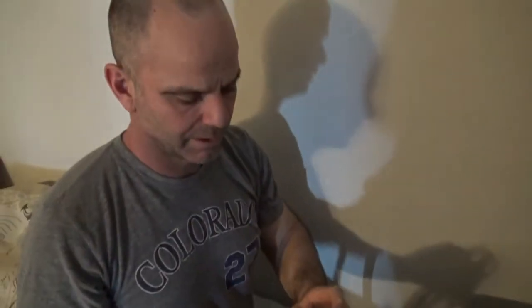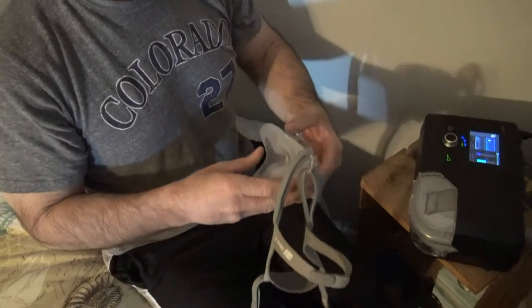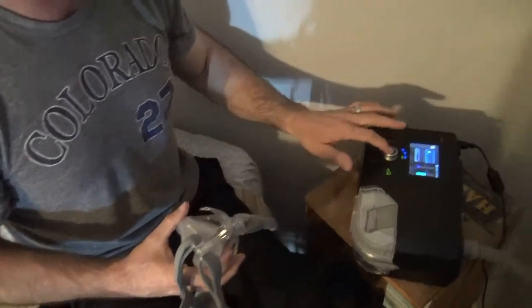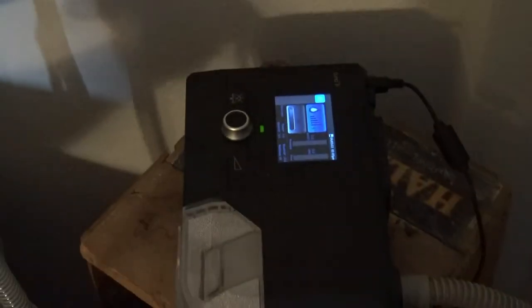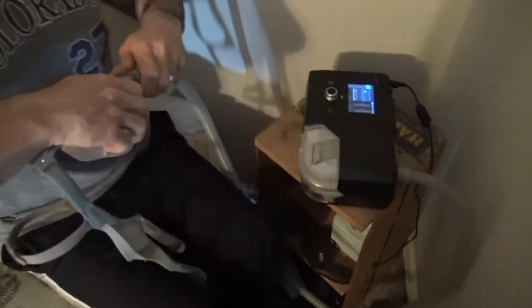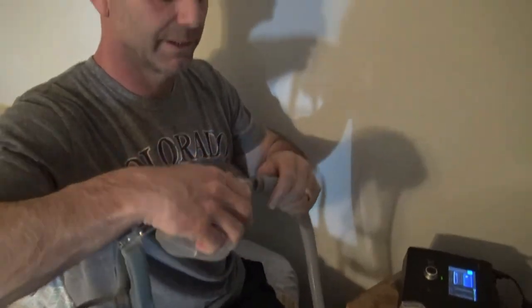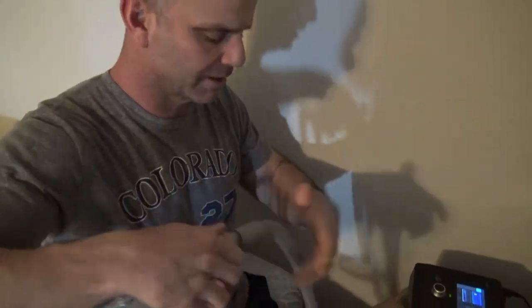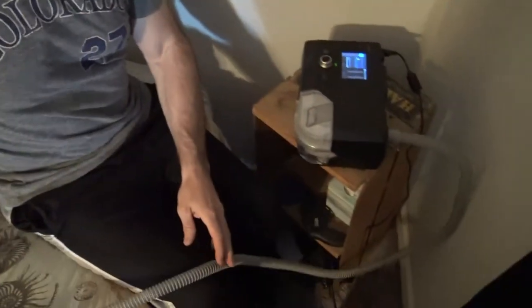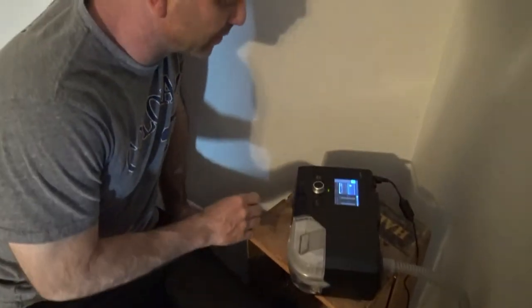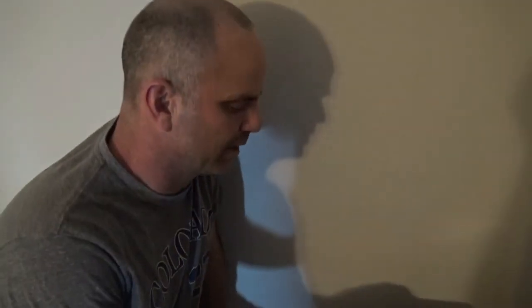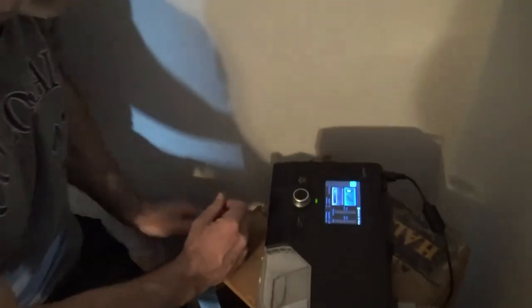This is really easy to clip on in the middle of the night. I sleep with my mouth open too, so I like to have my mouth completely covered. If you have to get up in the middle of the night and don't want to take your face mask off, you can just clip it off like that and clip it right back on. It's really easy to use.